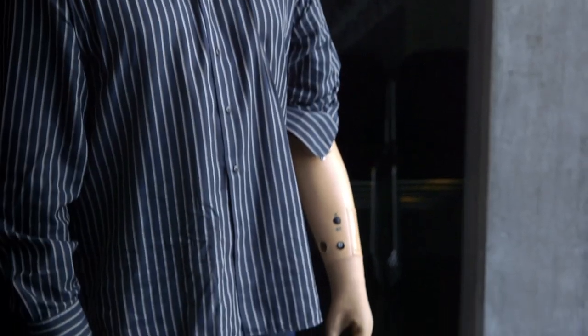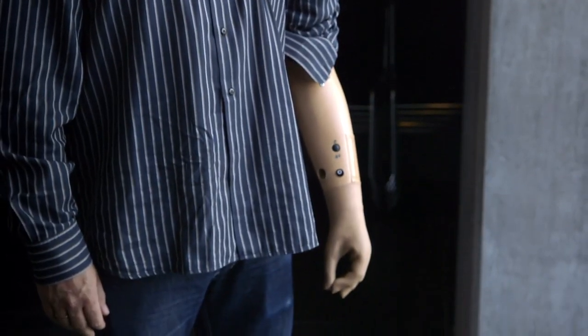The electrodes had to be removed and his sense of touch in that arm was lost once more. The fact that it was taken away again I knew from the start and yeah it was just incredible and I was very proud and also humbled to be the one who was selected for the project.